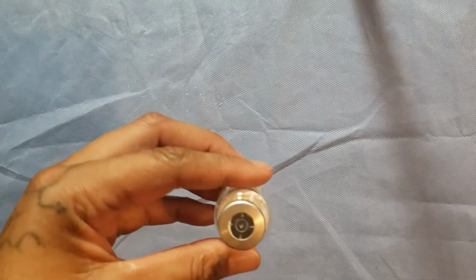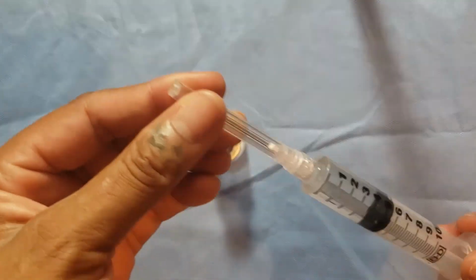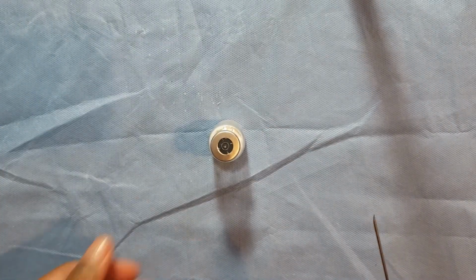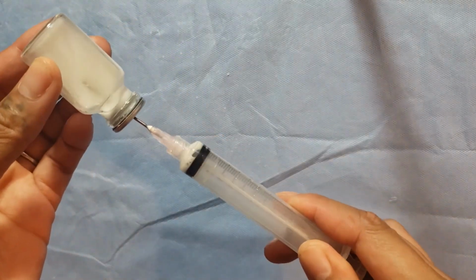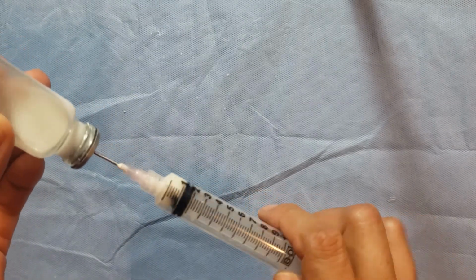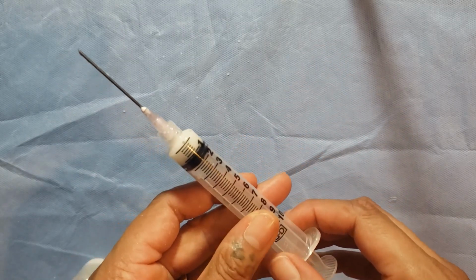When reconstituting your drug, it works similar to the use of a vial. You clean your vial and then you have your diluent. You insert the diluent into the vial, mix it thoroughly, and after you finish that, you withdraw the required amount of fluid. Be sure to tap out any air that may be in there to get the correct dosage.